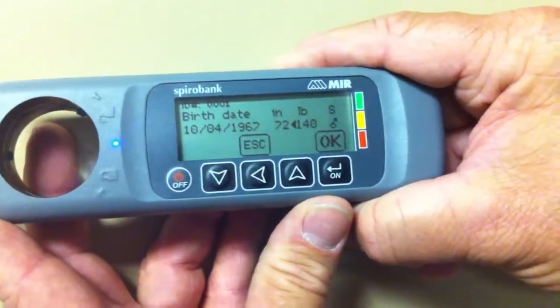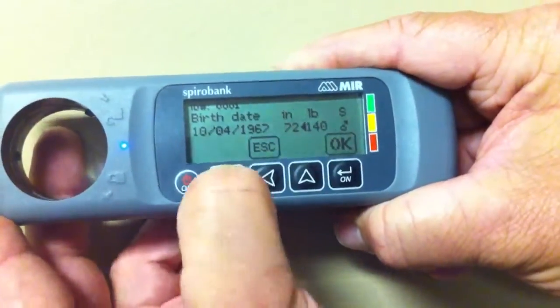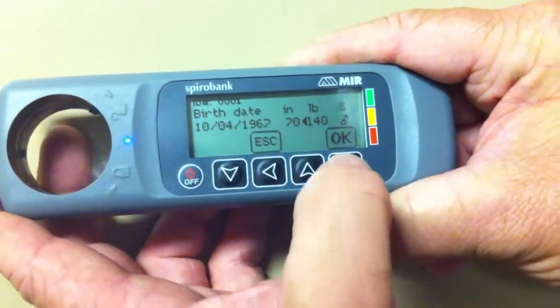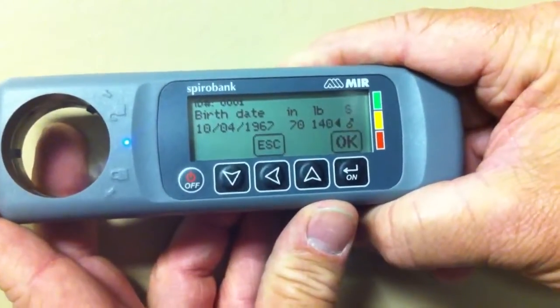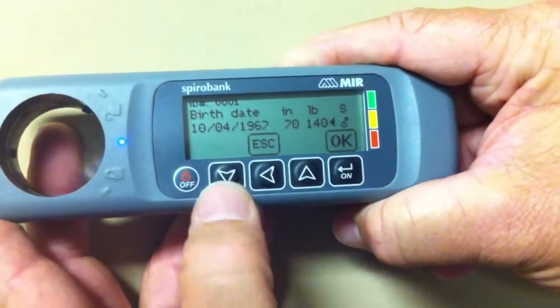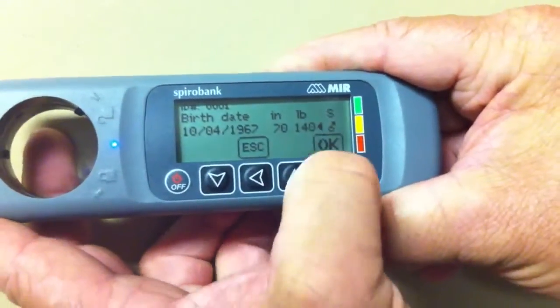Enter the height in inches using the up and down keys, then hit okay. Enter the pounds and weight of the patient using the up and down keys, then hit okay.